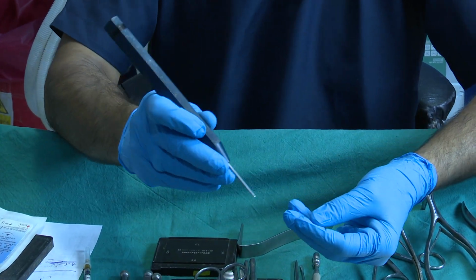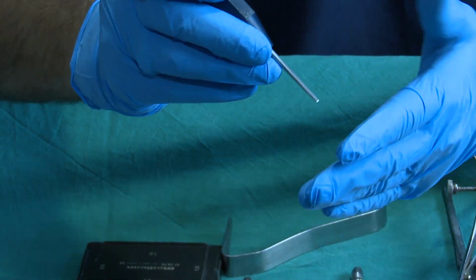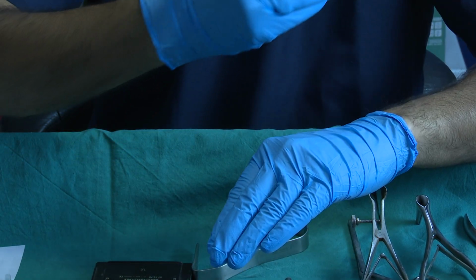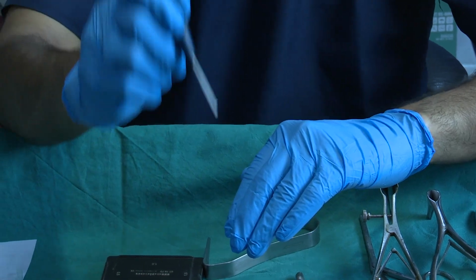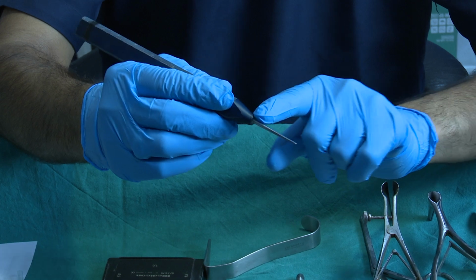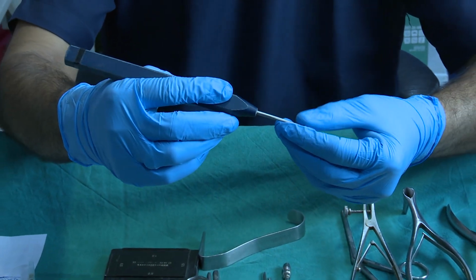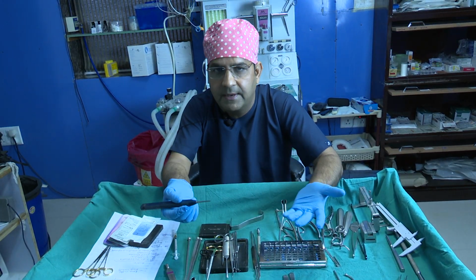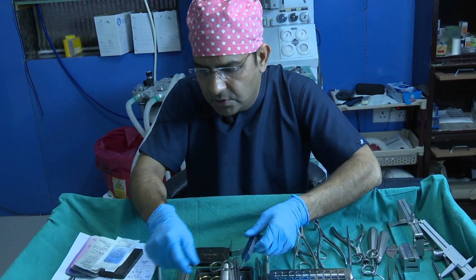We use this osteotome at a 70-degree position on the lateral nasal wall. First we mark the nasofacial groove, and after marking we hold it at 70 degrees and do the multiple perforations. When we do the multiple perforations, the ideal distance between two perforations is not more than 2 mm. It helps in the green stick fracture. So these are the usually used osteotomes.